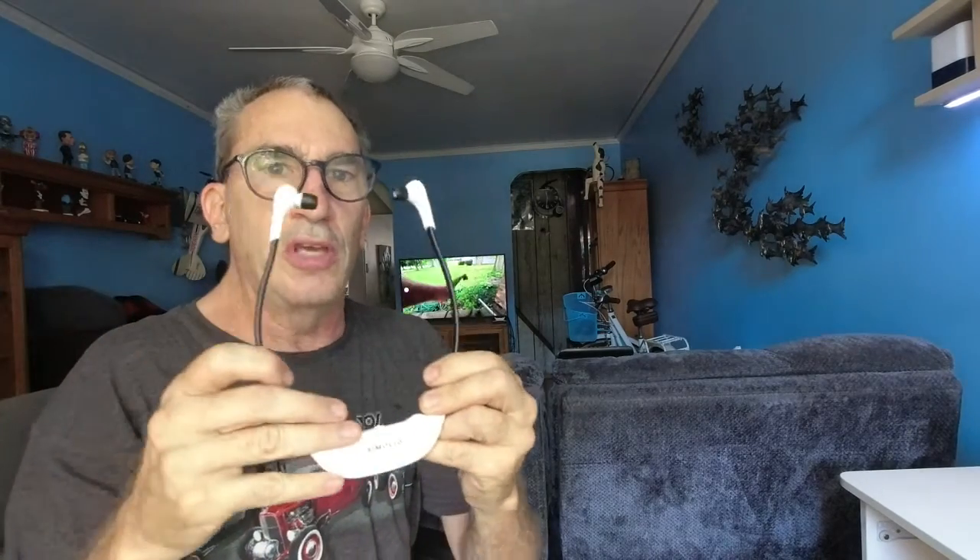This is a nice set — it has a long distance range, very easy to hook up, very simple to use. You get a couple of pieces and they have a memory adjustment, just the right amount to swing on your head. Courtesy of Ohio Fred — we're listening to his video through the headsets without disturbing anyone.